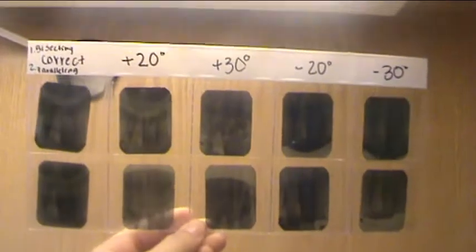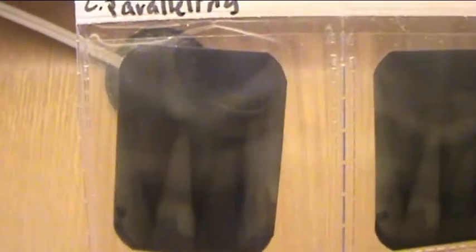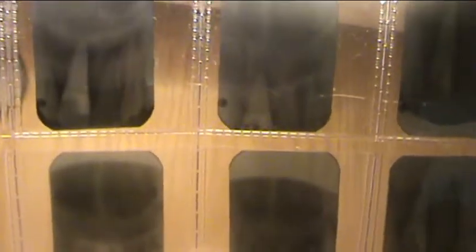So here are our results. Here is the correct angulation used for the bisecting technique, and here is the correct angulation used for the paralleling technique. Here we have 20 and 30 degrees too steep for the bisecting technique — plus 20 and plus 30 — and 20 and 30 degrees too steep for the paralleling technique — plus 20 and plus 30. This resulted in foreshortening of our images.